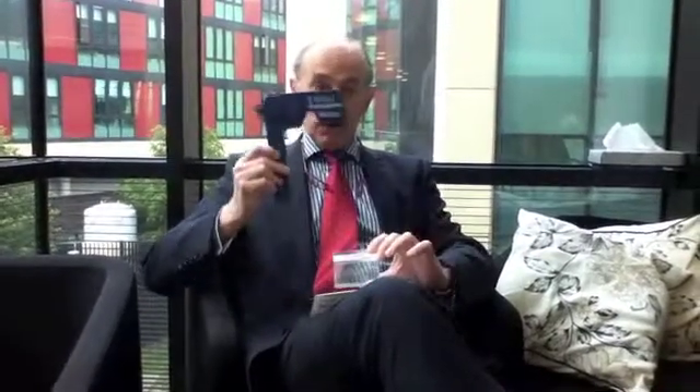The great thing about this is, if you don't like it and it doesn't seem to work for you, we can take it out — it's completely reversible. And even better, you can find out yourself by using the pinhole on this little card to demonstrate whether it works for you or not. So there's really no downside. It can be used in people who see well for distance but can't see well for near — so-called presbyopia. We can also use it in people who need laser vision correction; instead of using monovision, both eyes can be fixed for distance and we use this in the non-dominant eye to give them near vision as well.